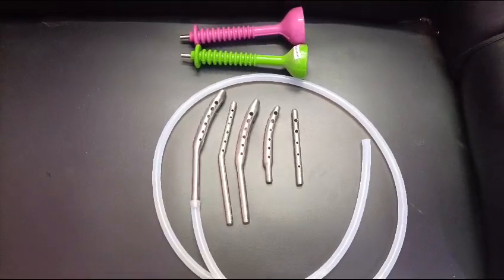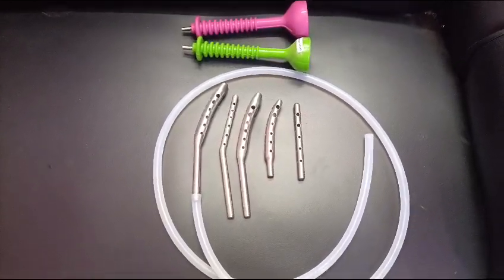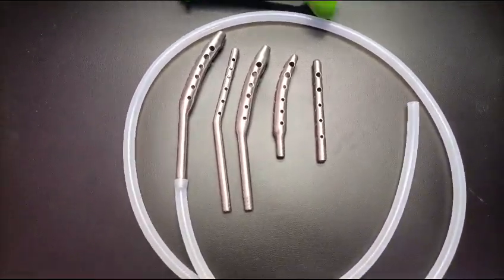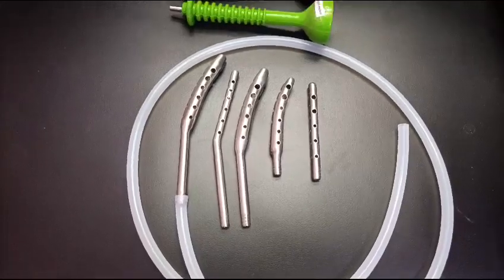Good afternoon doctor. Now we have the PPH cannula for postpartum hemorrhage. It is a set of 5. We have the right silicone tubing also, which is autoclavable.